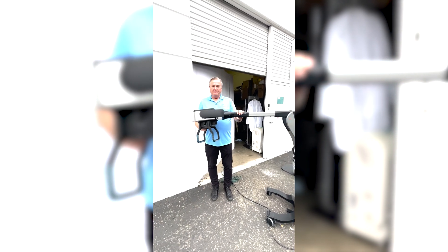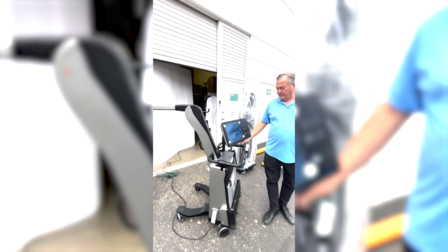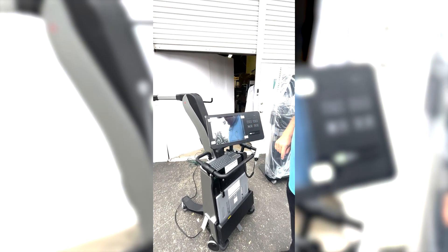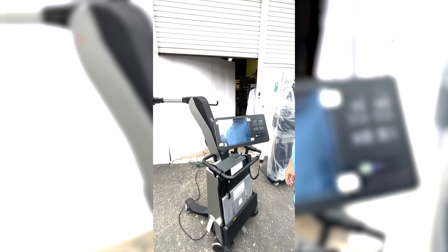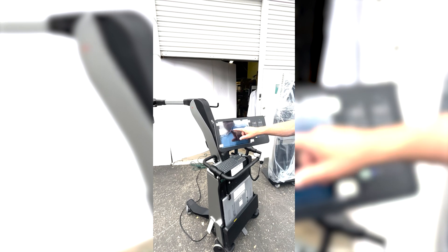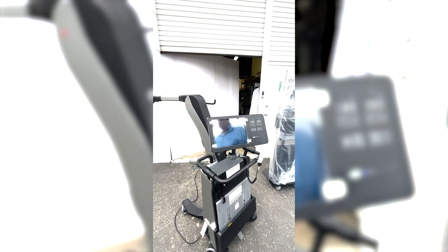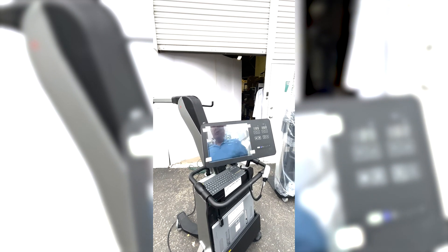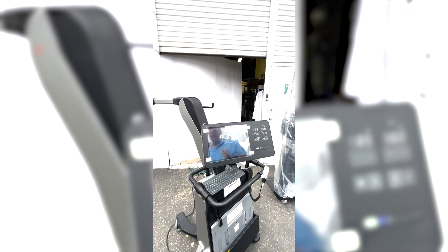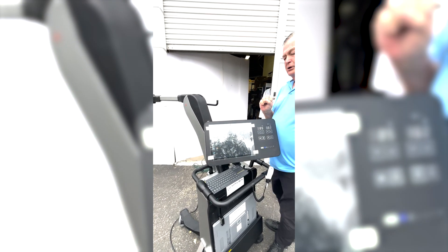To turn the system on, we come back to the console. We have a key switch up here at the top. We are now connected — the circuit breaker is turned down. We now connect and turn the system on. As you can see, the screen is coming up and it's going into Windows. This will take about a minute. It goes through the administration and into the screen. While we're waiting, we also have four USB ports — one connects the Wi-Fi keyboard and another connects here.